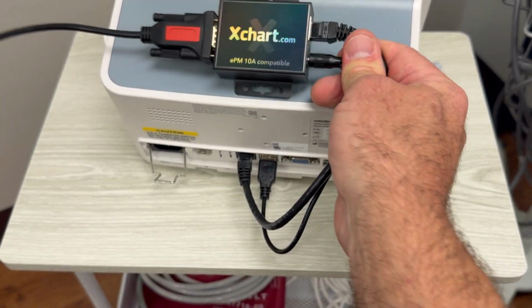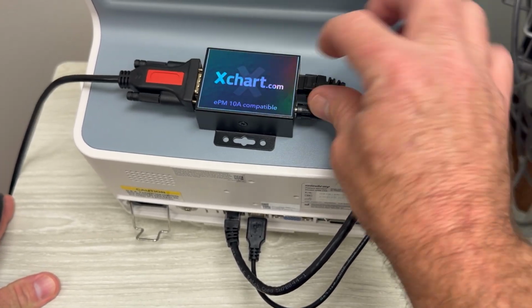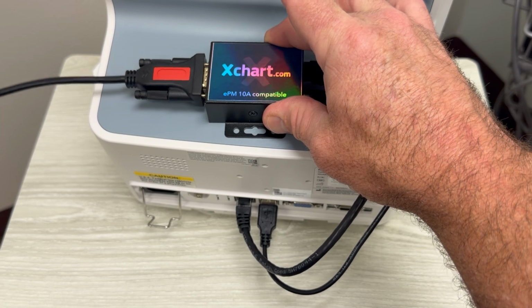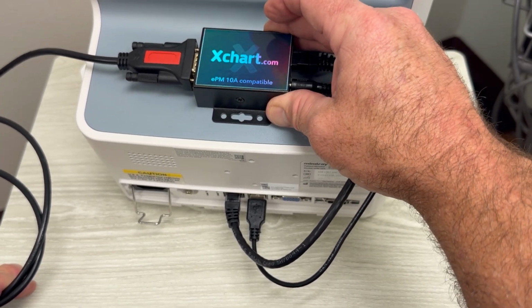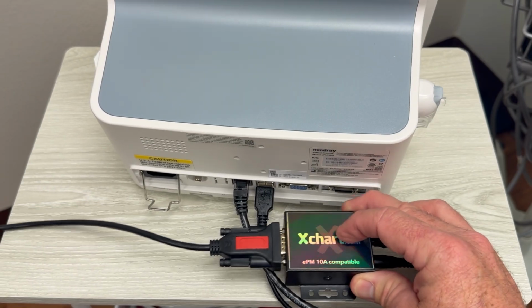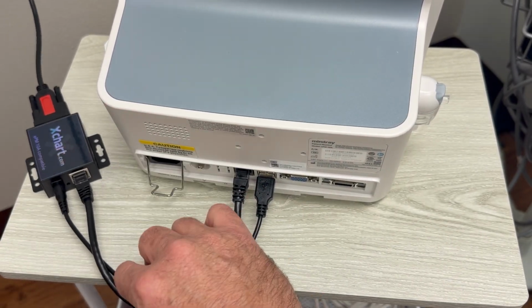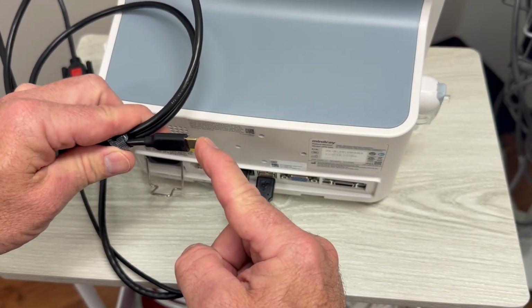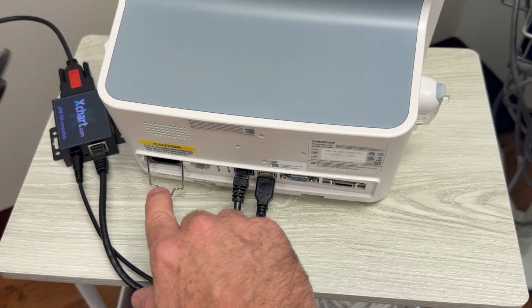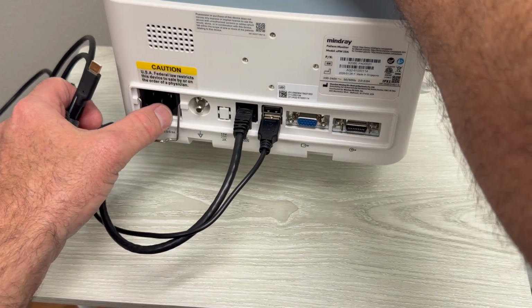This is something that can be attached with Velcro or something if you like, to make it easy, so that it's all kept together on your monitor. You can do that, and that's a good way to keep it close by, or you can just set it down behind your monitor in a passive way, so that you can use it and move it around the operatory. This portion will be the one that goes to your computer. And the other one you're going to need to know about is the power cord, which needs to attach into the site here.